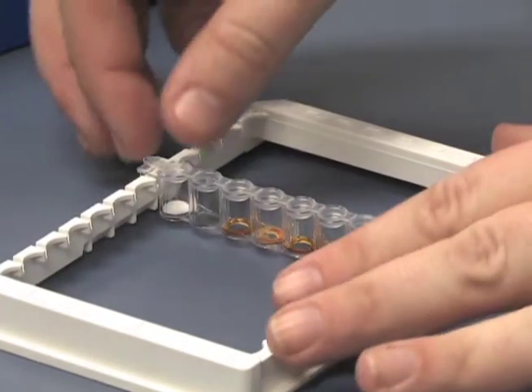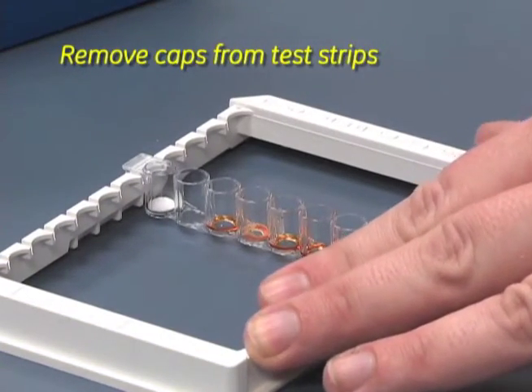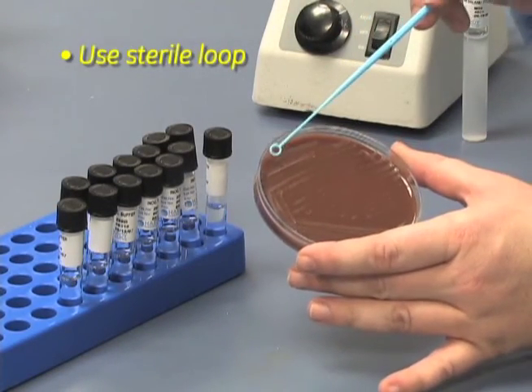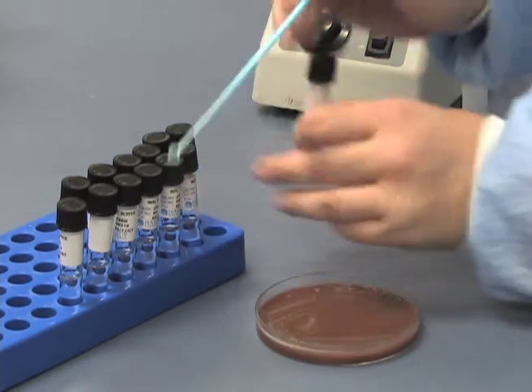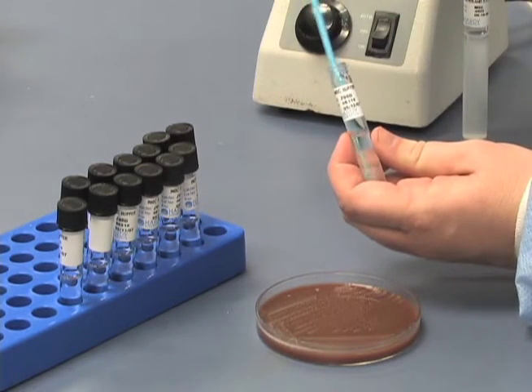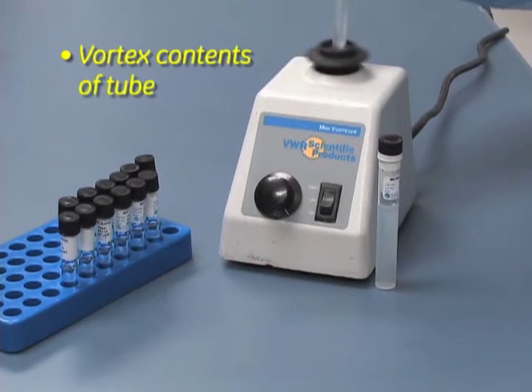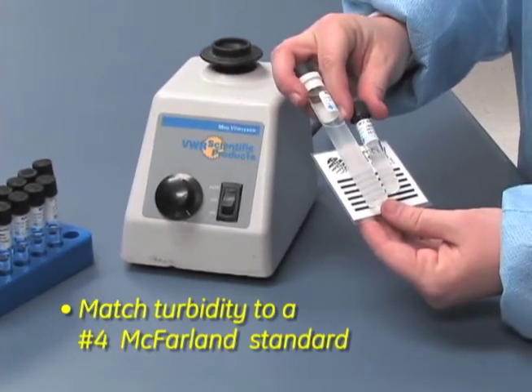The easy procedure is as follows. Remove the caps from the test strips that you want to use — leave the strips in the base. Use a sterile loop to transfer a heavy suspension of a 24-hour culture to the inoculation buffer tube. Vortex or vigorously mix the contents of the tube and match the turbidity to a number 4 McFarland standard.